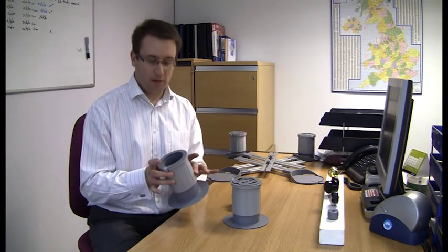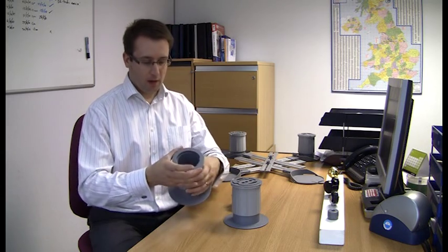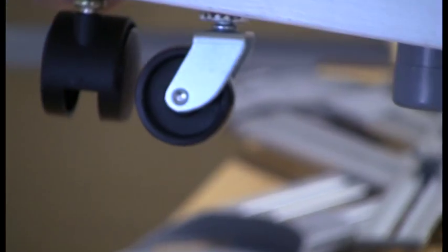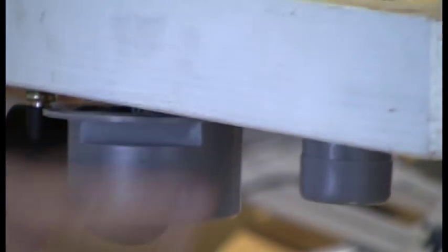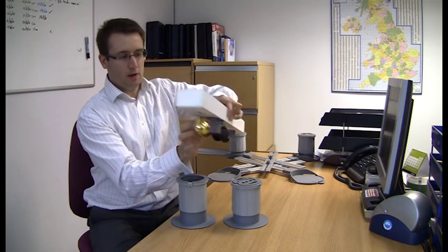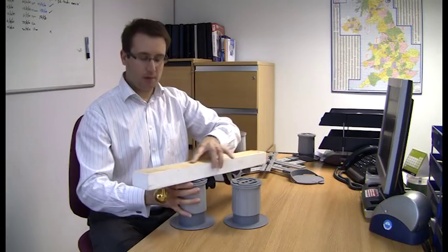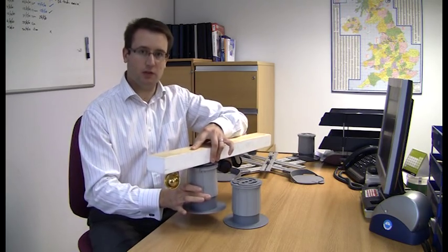Once the raisers are at the correct height for the furniture, you can also turn the top ring relative to the body, and there's a securing tyre which will tighten up either around the leg of the furniture if you drop the leg straight into the cup. The raisers also come with a caster adapter which will clip around most casters found on domestic pieces of furniture, so that the caster is captive inside the adapter and the stem goes through the top of the adapter, which then drops into the cup, and you tighten up the securing tyre around the adapter to give you a good secure fitment.